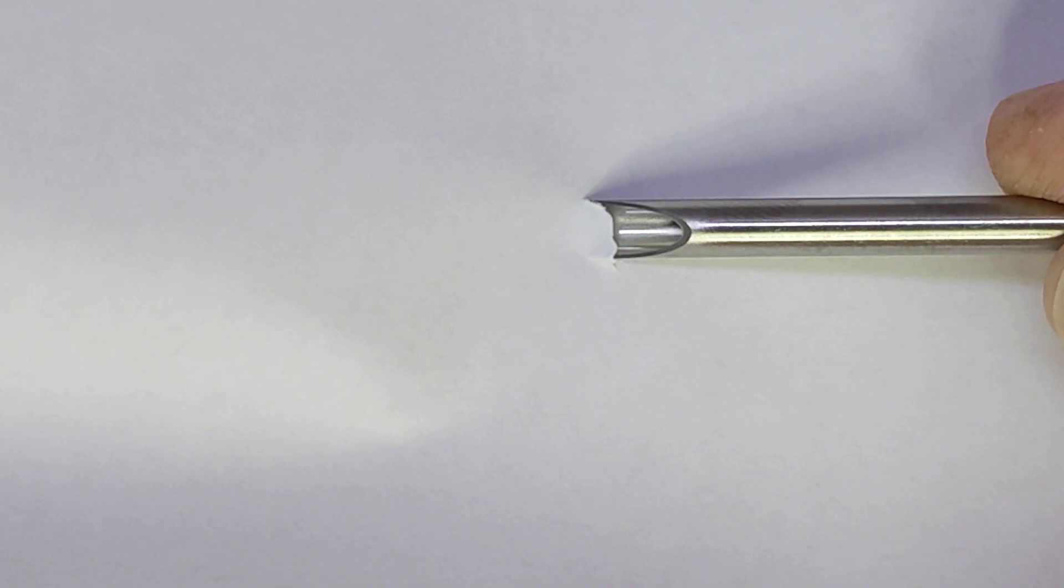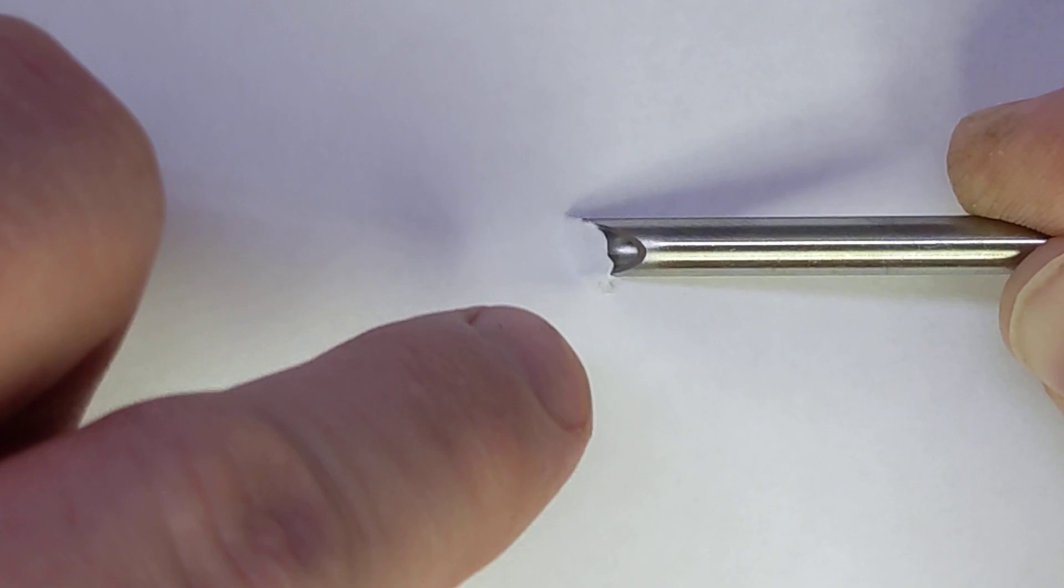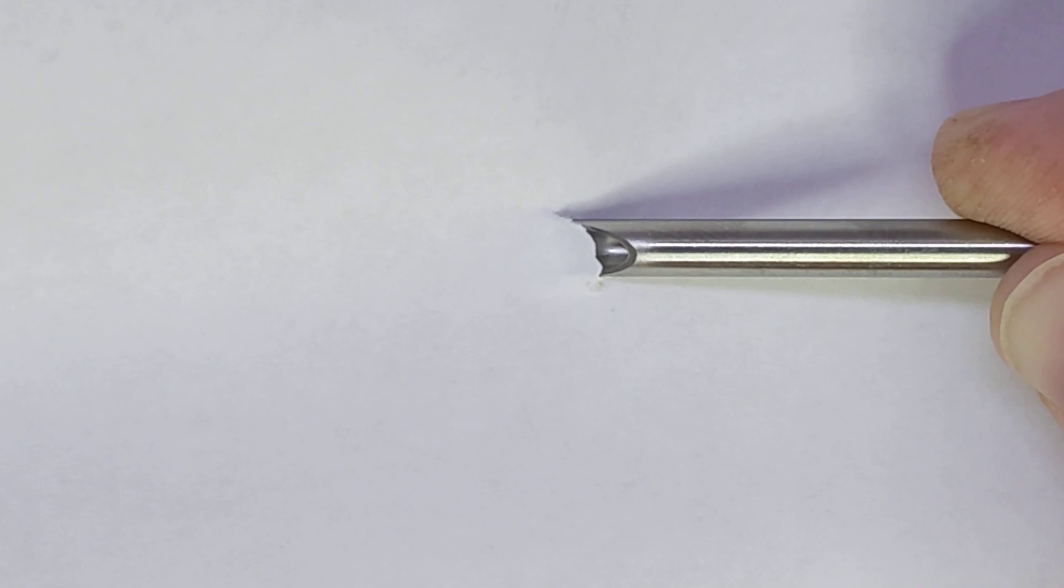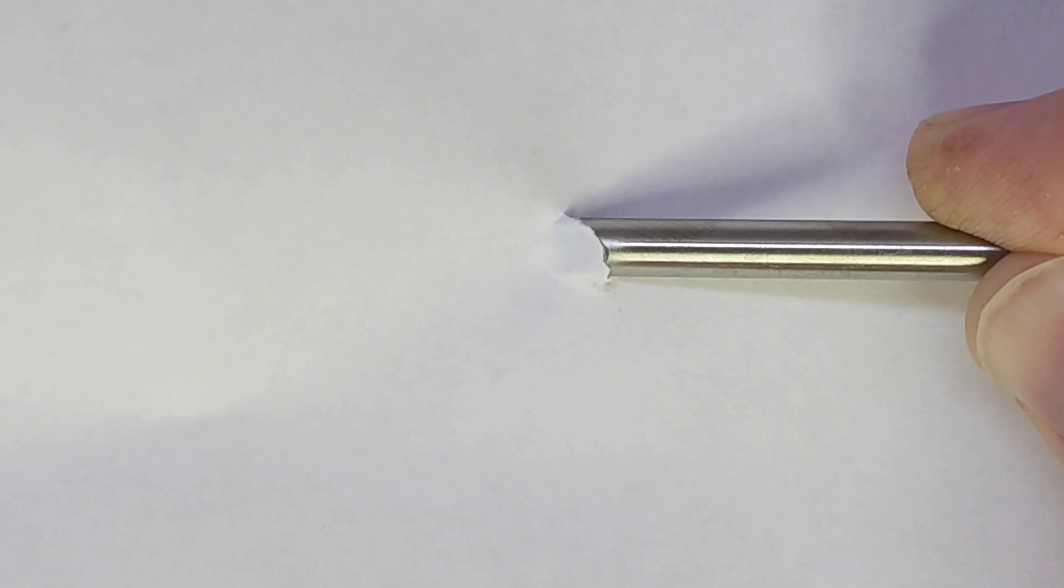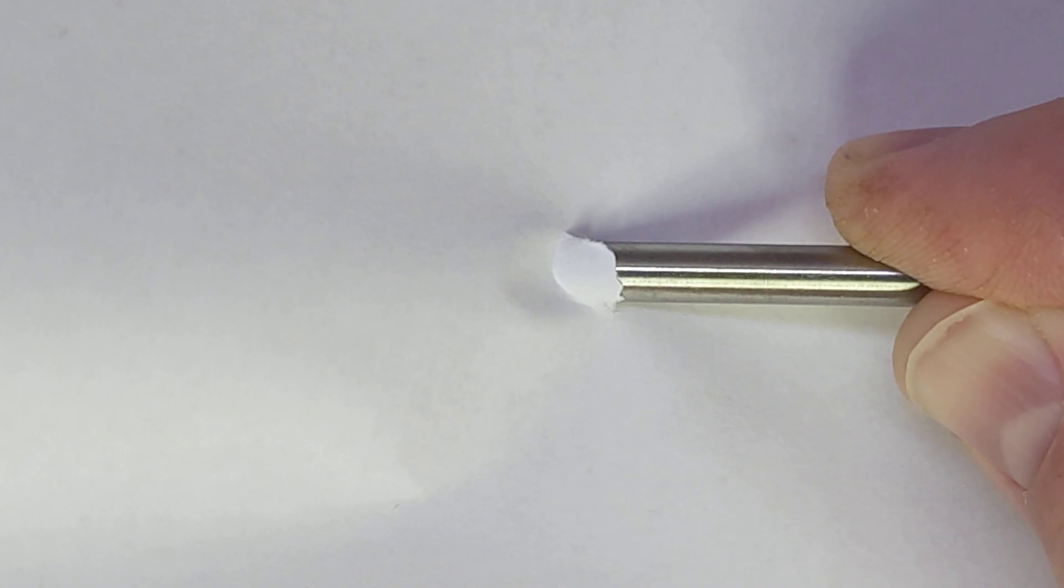As you go in, if that was skin like the paper is bending up in a way, but if this was skin it would be going into the inside of the hollow needle. So bevel up creates this kind of catch and typically that skin will end up having to fold under like that as the needle goes through the incision hole.